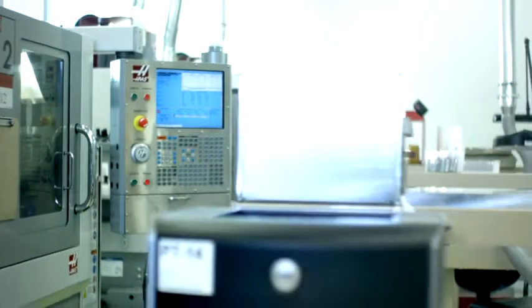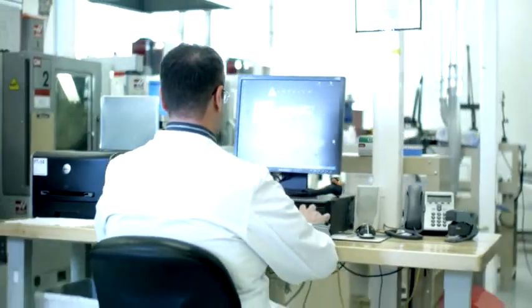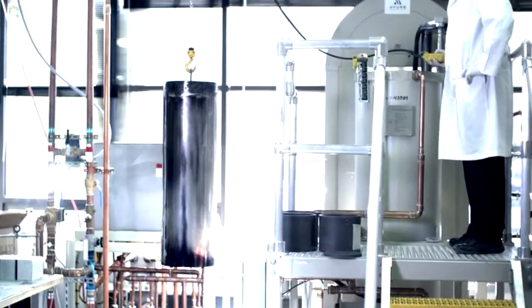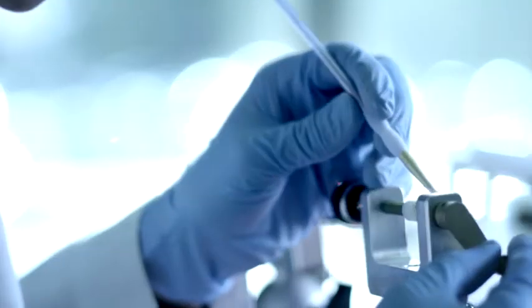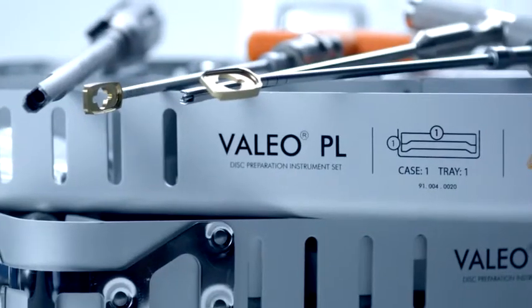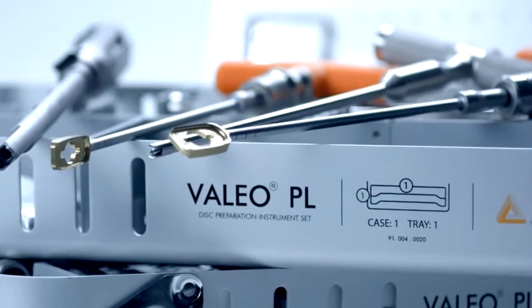Silicon nitride also has the unique distinction of being visible in all types of imaging – X-ray, fluoro, CT, and MRI – yet it doesn't cause obstruction or leave artifacts like metal. These are huge advantages for post-op implant interface assessment, as well as intraoperative implant placement.